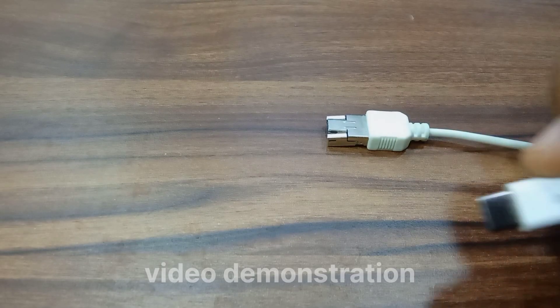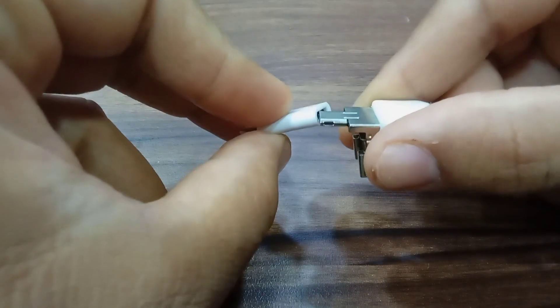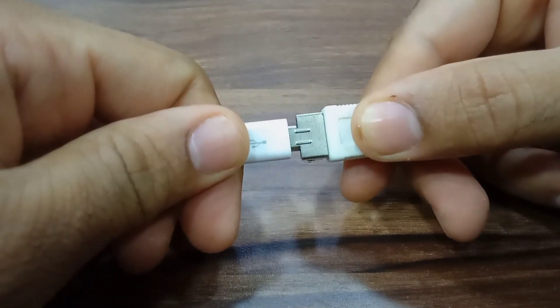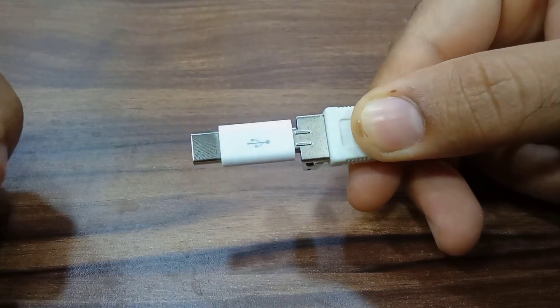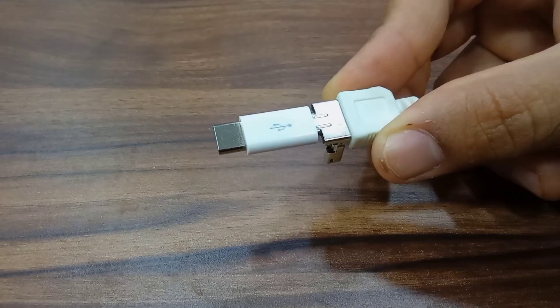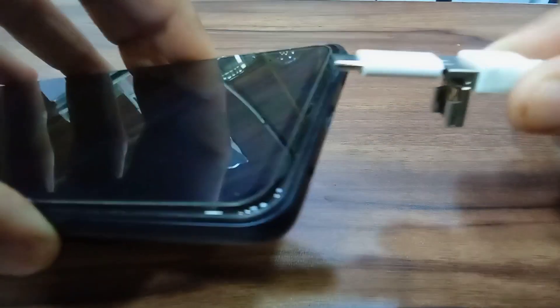In modern times most new mobiles have USB-C type connection, so the connector is provided. One of the major mistakes everyone is making is not pressing the connector in hard enough. You need to press it hard and hear that small click sound to ensure a complete connection. Most people just loosely place it and then connect it to their mobile, which is why they are not able to turn on the intraoral camera. Once you hear that click, your intraoral camera is ready to be connected to the USB-C port of your mobile and is ready to use.